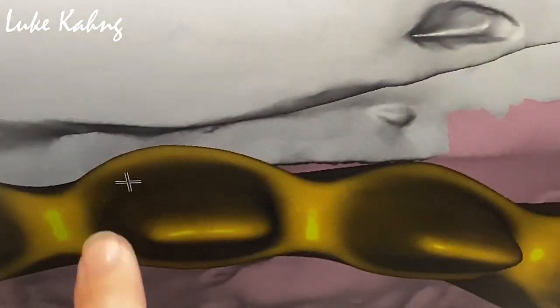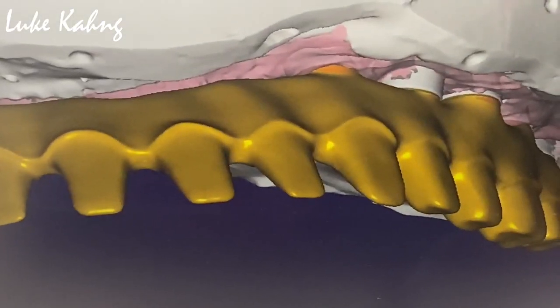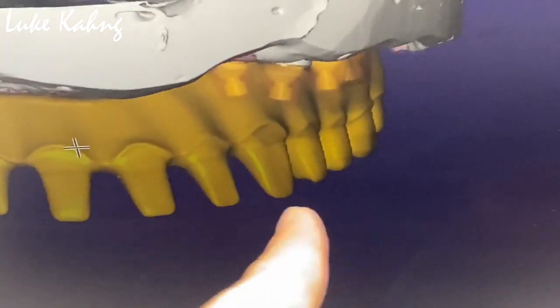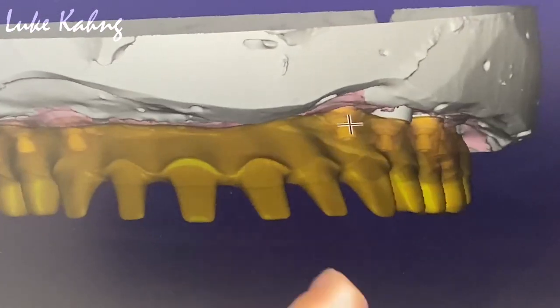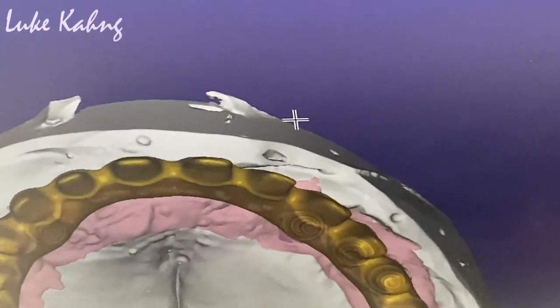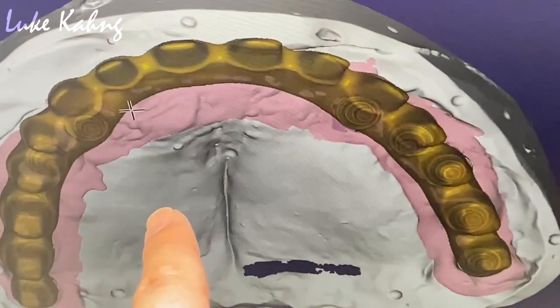So now this is the main problem — is the fracture, right? Can I see the implant side inside? So we have to see the connection of those — is there enough connection? I'm talking about the lingual ring. I think you can put it a little bit thicker; it's really thin, it's skinny.